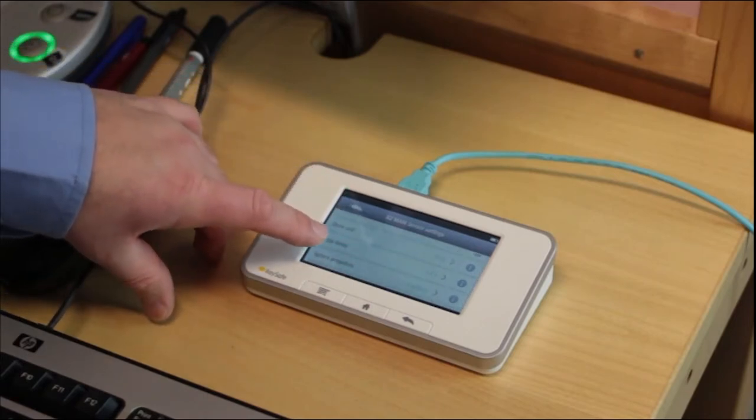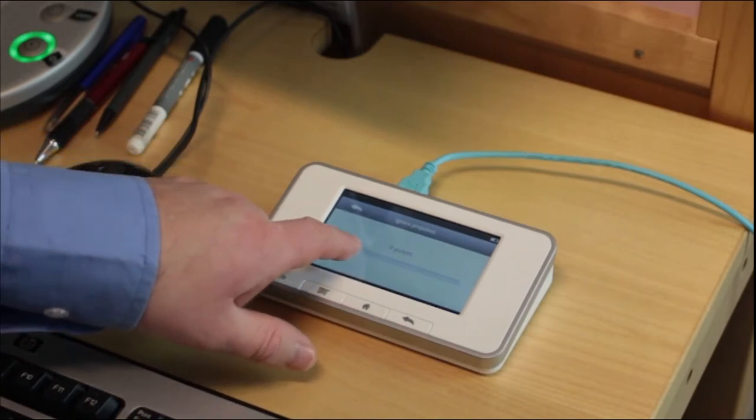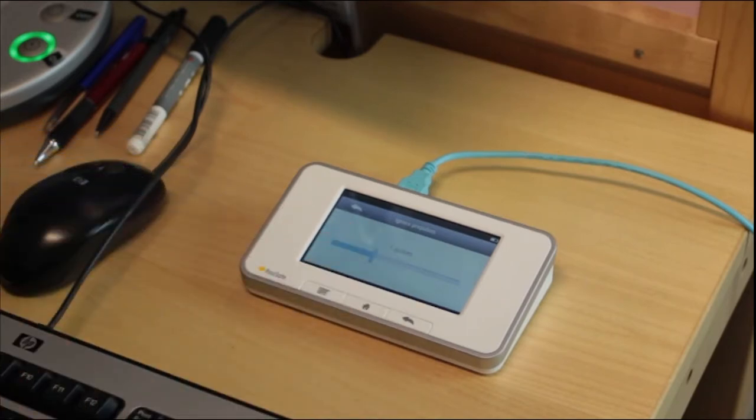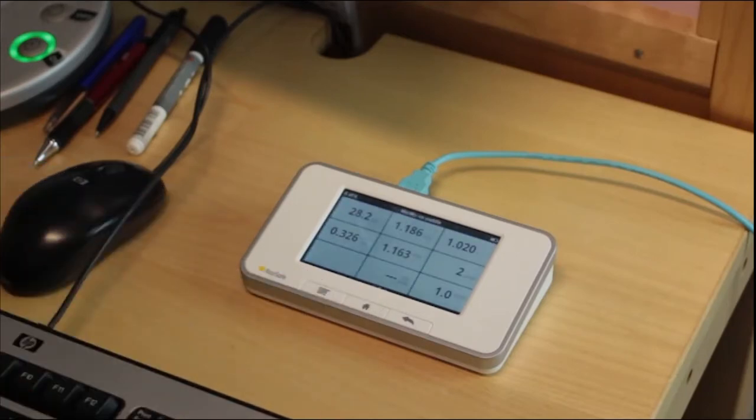To exclude the pre-pulse, we need to select ignore pre-pulse. We ignore one pre-pulse and make a new exposure.